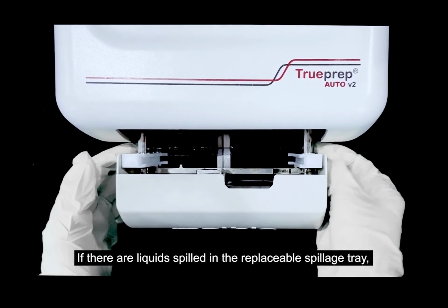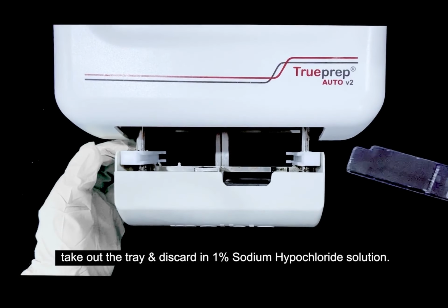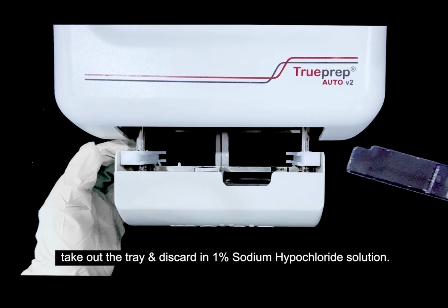If there is any leakage of liquid and that particular area is contaminated, you can take this plastic tray out and discard it into 1% sodium hypochlorite solution. And if any other portion of this place where you put the cartridge is also contaminated, please use 70% alcohol to wipe that area.